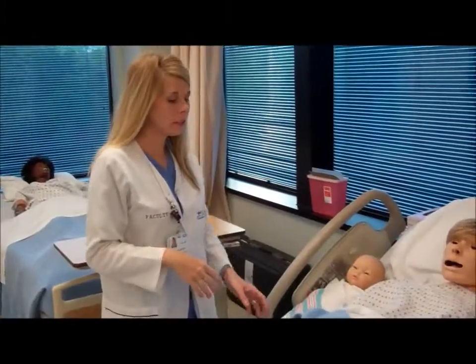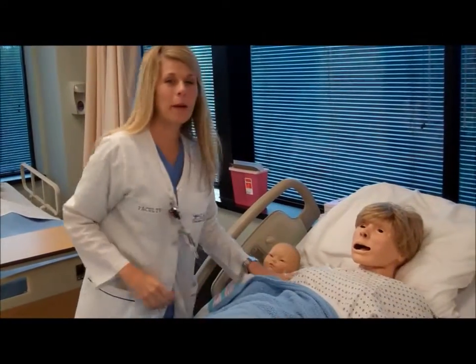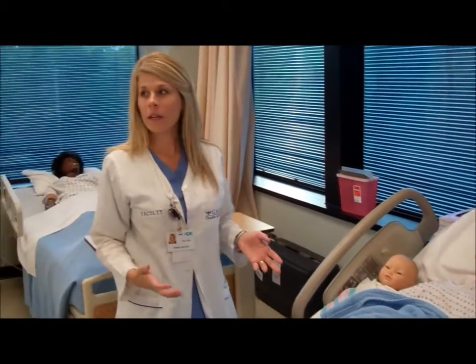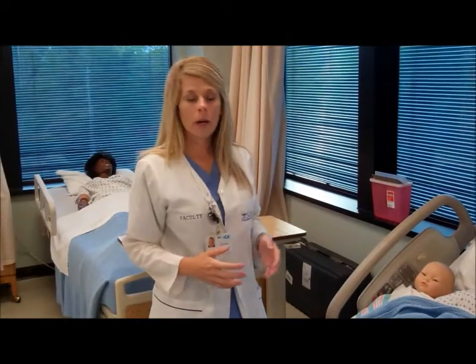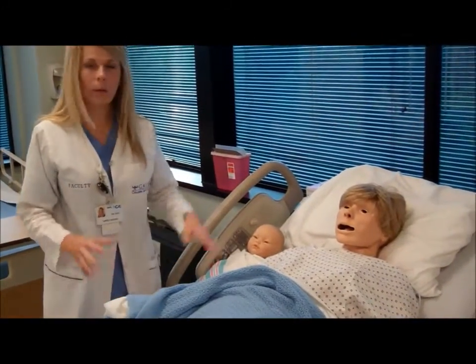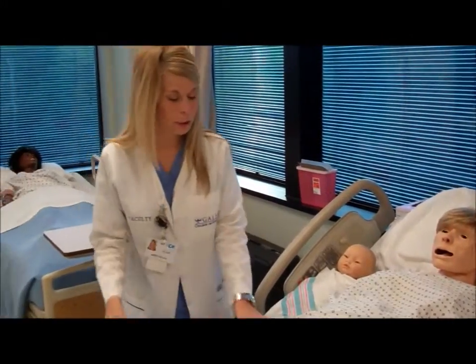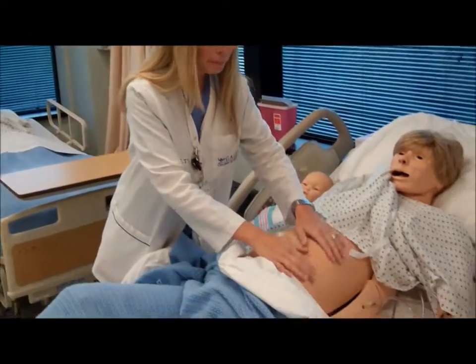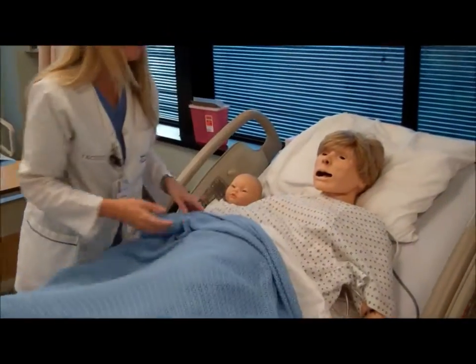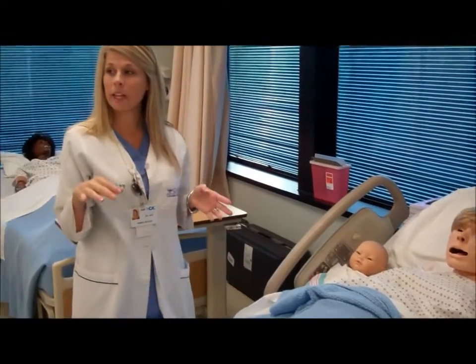So this is Noelle, this is our mother-baby simulator. She actually births a baby, so she's set up to equipment. We actually place a baby in her belly, so she has a nice big pregnant belly. We set her to a timer, and the baby actually slowly pushes out.